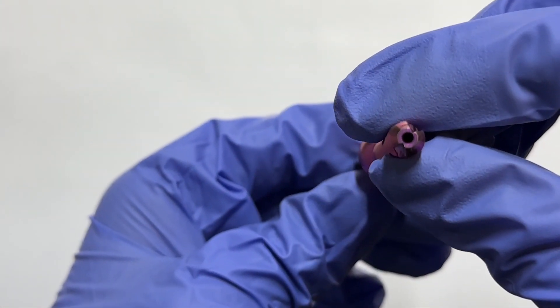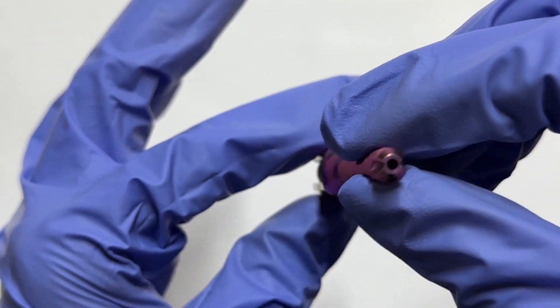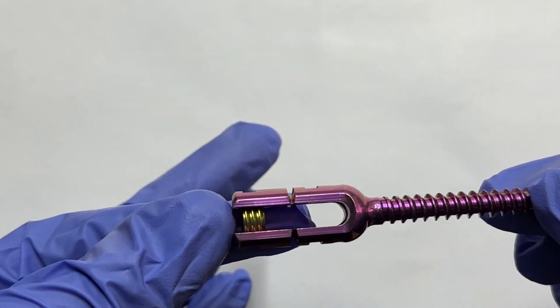The monoaxial pedicle screw features an immobile screw head designed for effortless threading and strong controlled insertion.